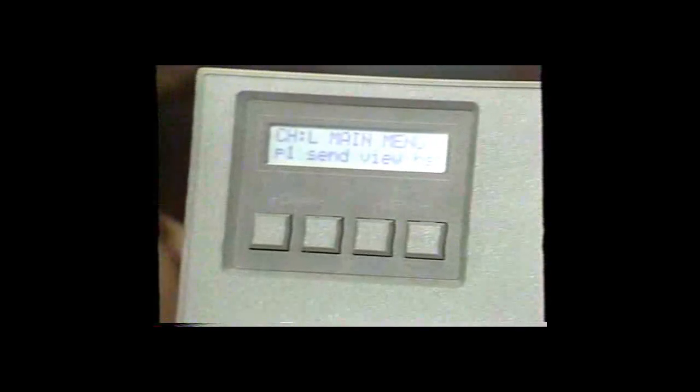Other operating notes about the 381 densitometer: if for any reason during operation you want to return to the main portion of the menu, simply depress the two keys on the right of the densitometer. These keys will return you back to the main menu. This densitometer contains 12 individual channels or storage locations for 12 different processors. To access a different channel, simply depress these two keys, and the densitometer will indicate what channel it's presently in and how to change to a different channel.